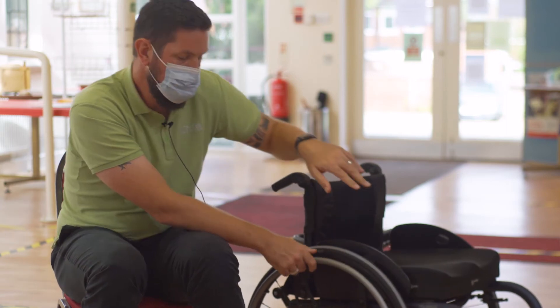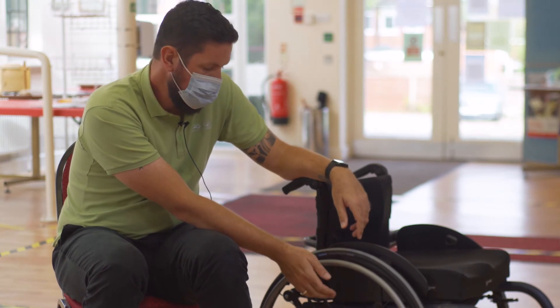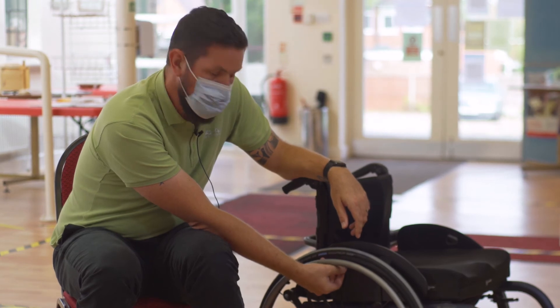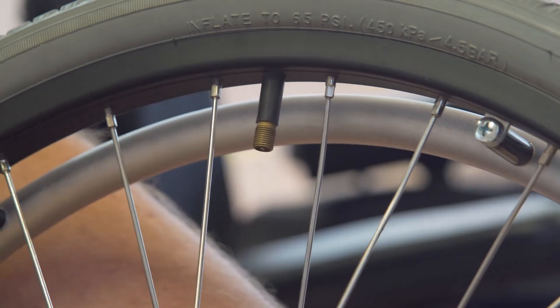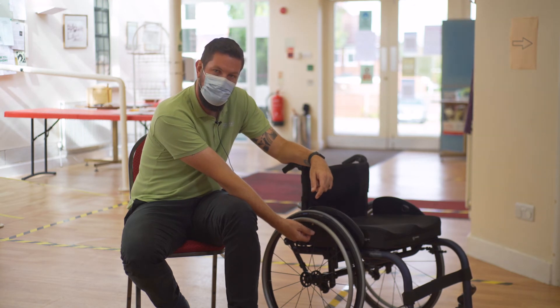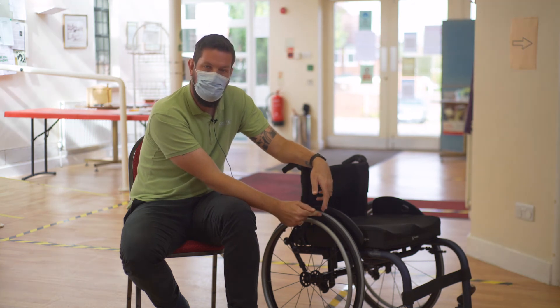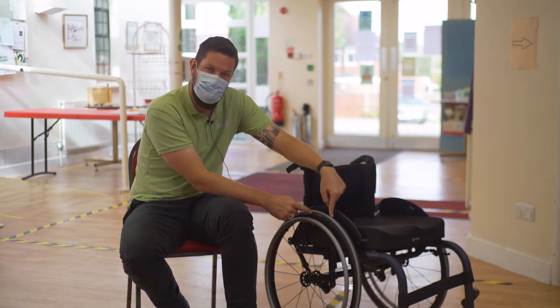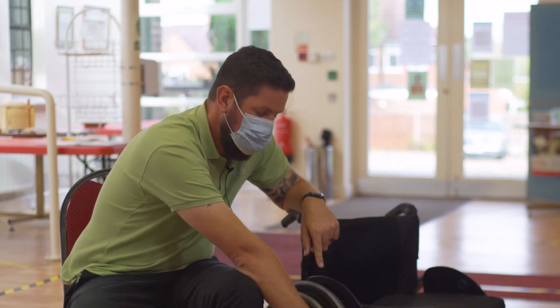You may come across two different valves when inflating your tyre. One is a Presta and one is a Schrader. A Schrader valve is very simple — you have these on pretty much all car tyres, a lot of bikes and a lot of wheelchairs. The Presta valve is used in a lot of sports equipment. It has a screw top to the valve, which you need to release before attaching the pump. You can then inflate the tyre to the required pressure, the same as with the Schrader valve. It will show the pressure on the side of the tyre. Once this pressure is achieved, your brake will then lock into place.